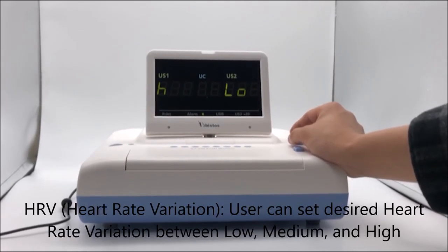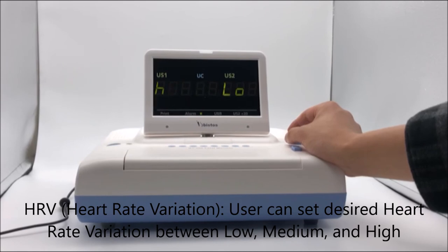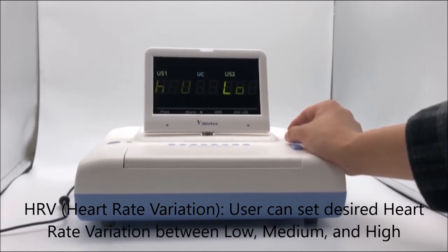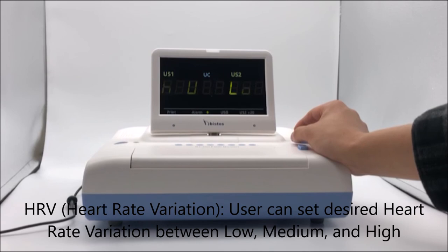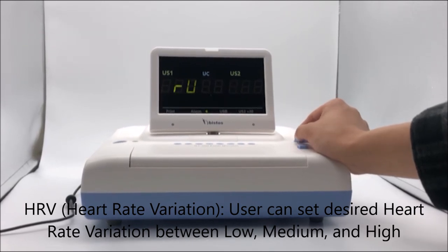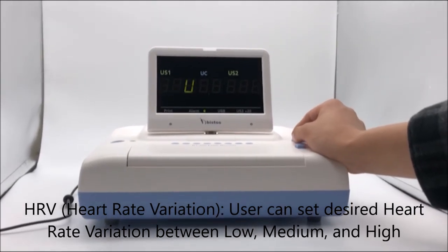HRV — Heart Rate Variation: the user can set the desired heart rate variation between low, medium, and high.